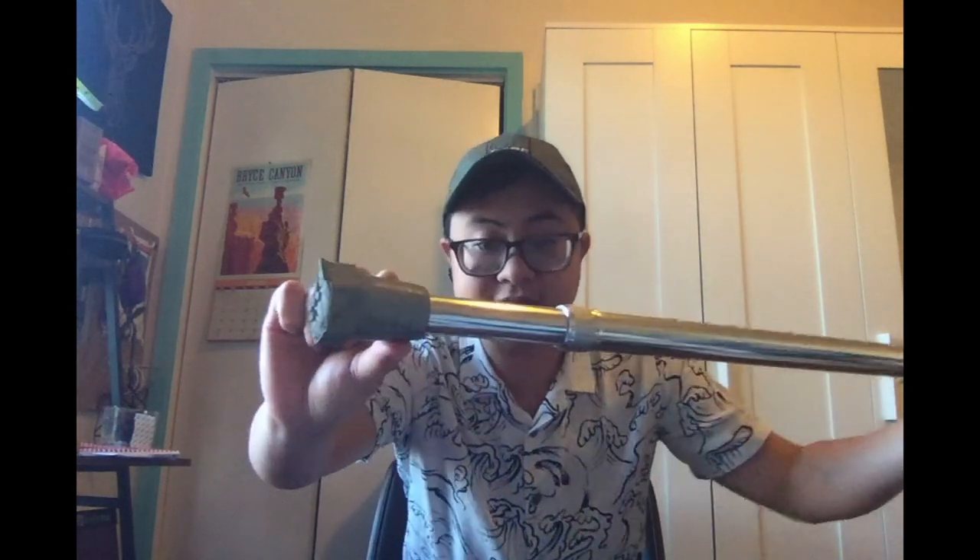The first pair of crutches I wanted to show you was the standard forearm crutch that you can get at pretty much any medical supply store. These run for somewhere between $100 and $200 — pretty much what you might get discharged from the hospital with. These come with a standard tip, it's very small, and it becomes brittle over time.